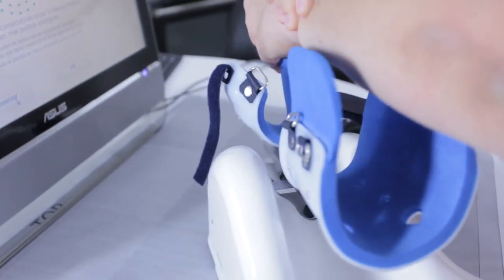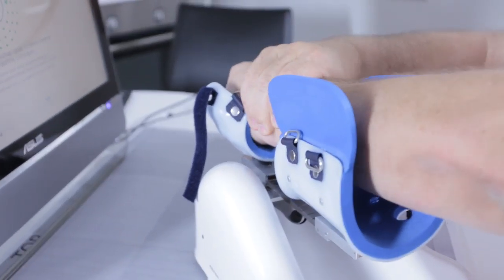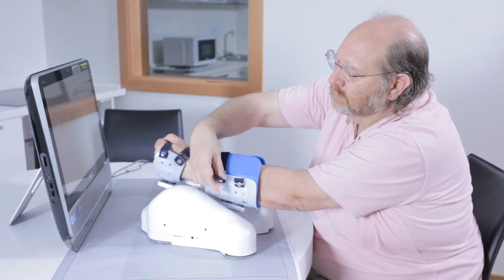The Arm Assist system has been developed for compatibility with a tele-rehabilitation platform for use in the clinic and in the home.